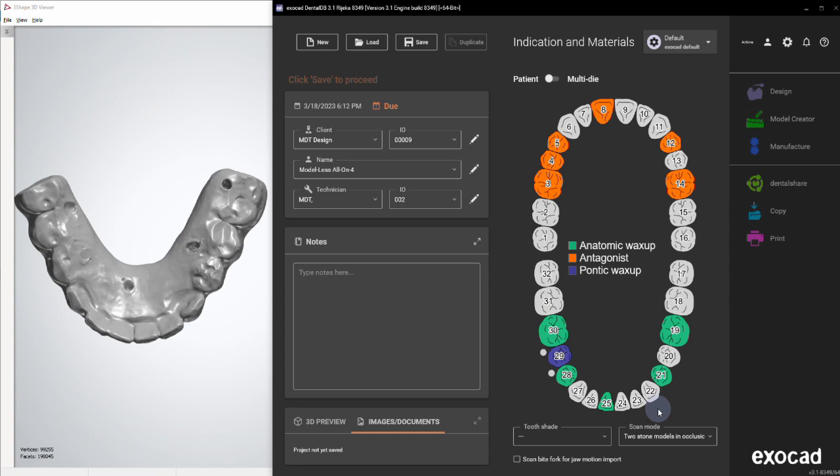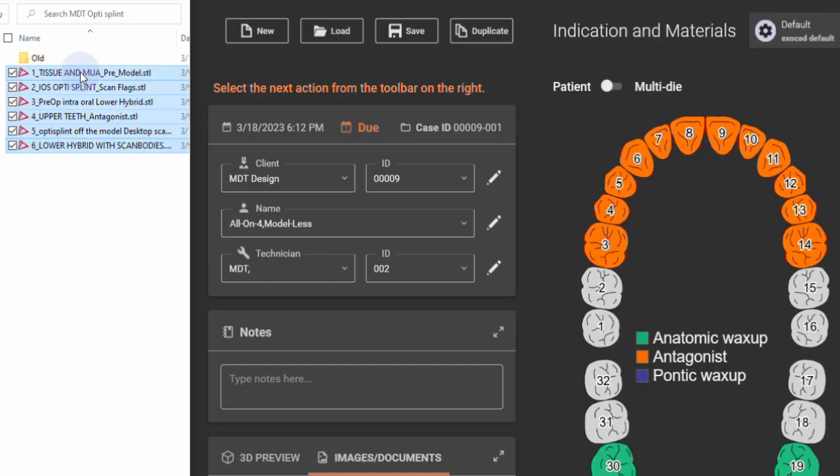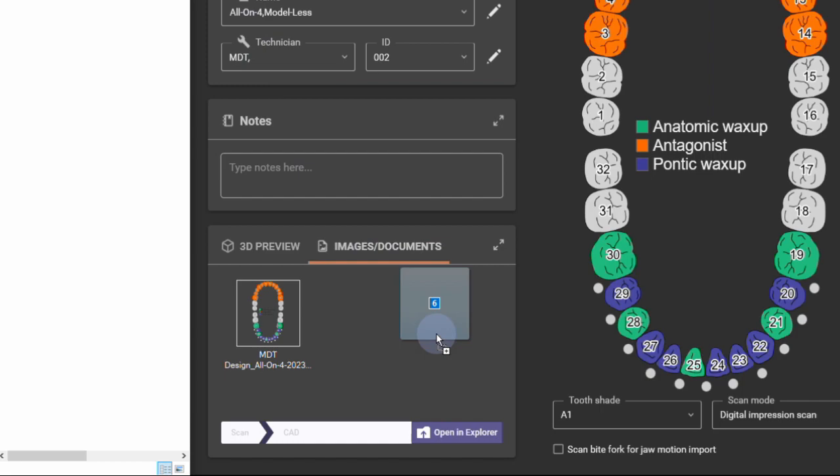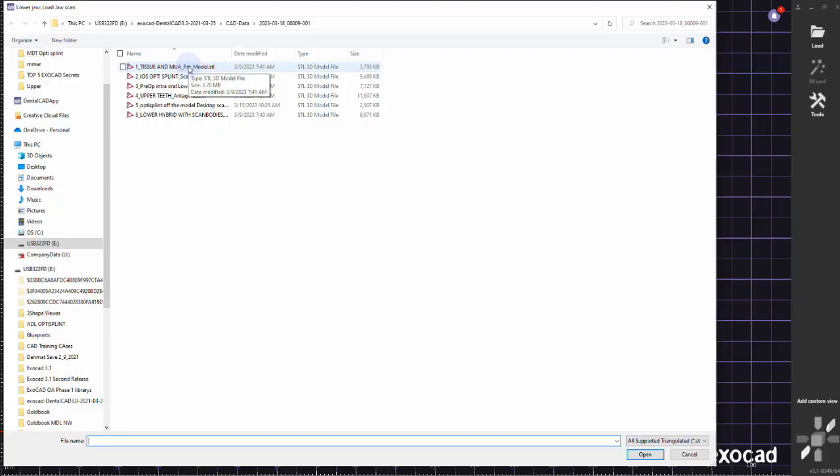Then I click OK and, holding Ctrl, I select all the other teeth. Then I'm going to select the first pontic site. Usually what's going to happen is that everything what you selected in the anatomic wax-up is pre-selected, so all I do is click OK here. Again, Ctrl, I select digital scan because I have digital files here. Select the shade and click save.